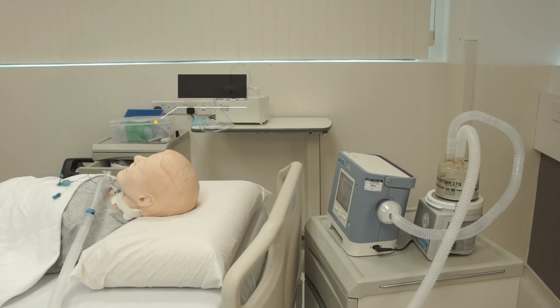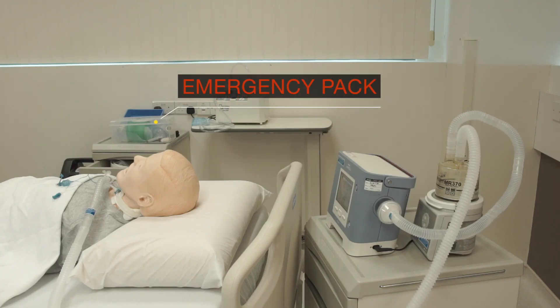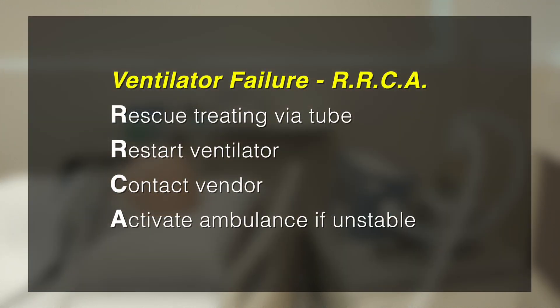Remember, always keep your emergency pack next to the patient and keep calm. For ventilator failure, follow the RRCA steps.